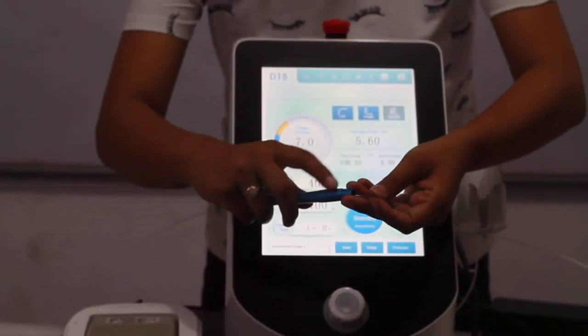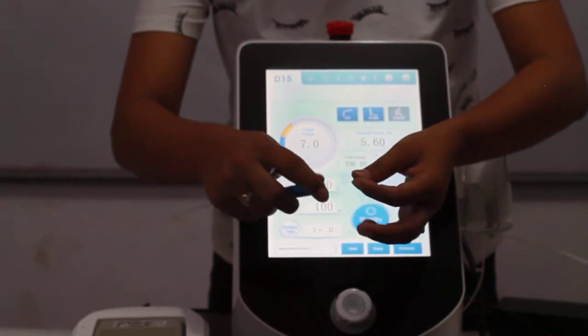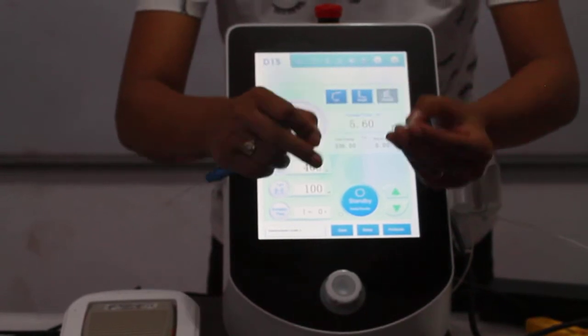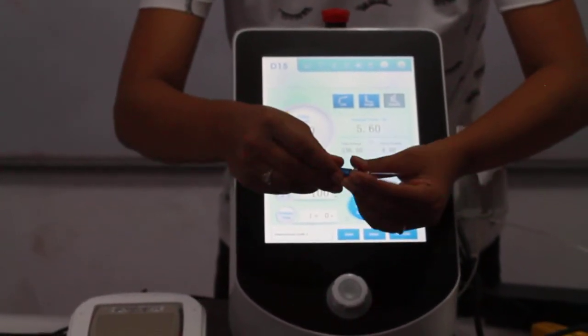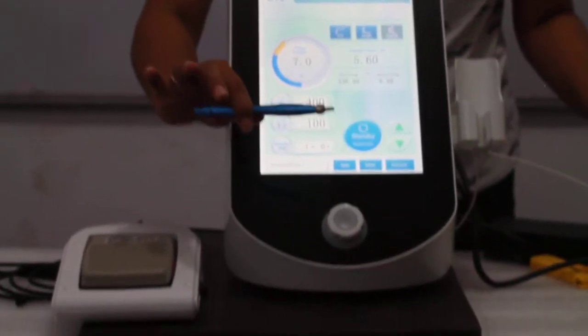The marked serrations that you can see on the handpiece is the front side of the handpiece. Along with that a screw is given. The movable part of the screw will go on the back side. And we will lock this. Once the system is locked, this is ready.